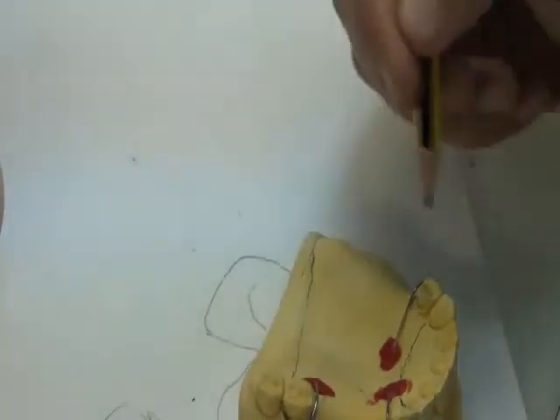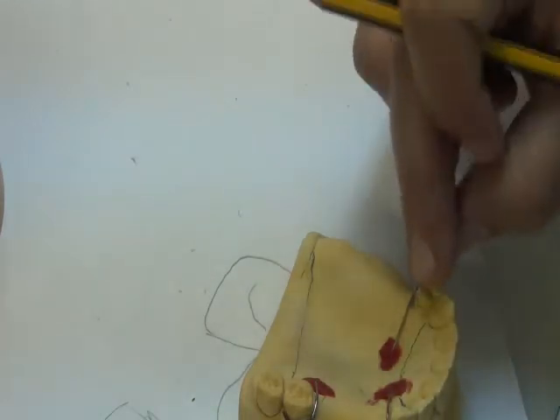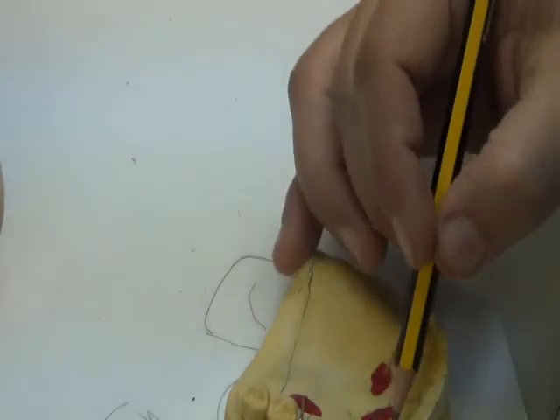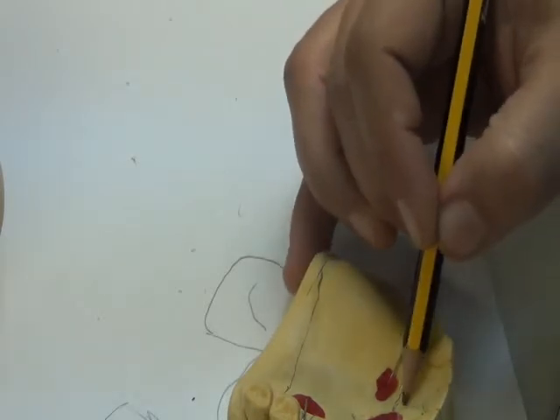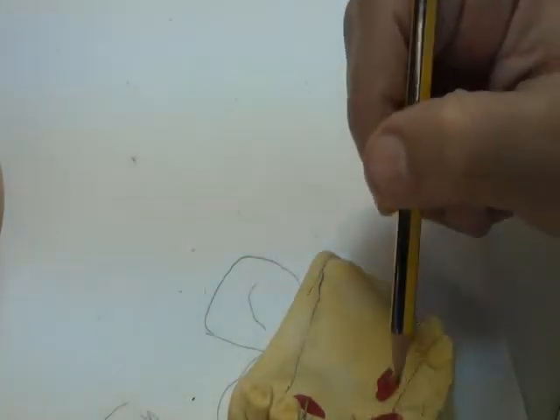But suppose I have another extracted tooth here and I need to extend to the canine. I find that the distance between the marginal gingiva here and the base of the acrylic is less than 6 millimeters. I have to cover it all. I should not leave narrow spaces between the marginal gingiva and the acrylic border.